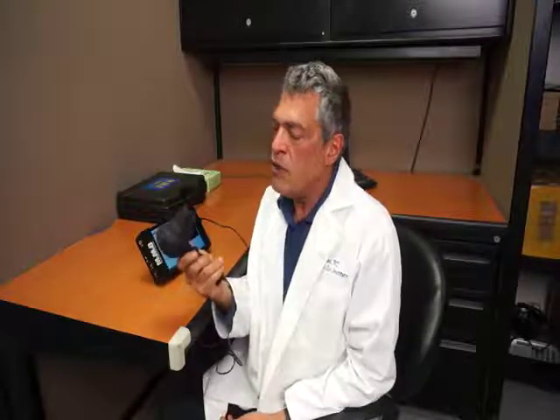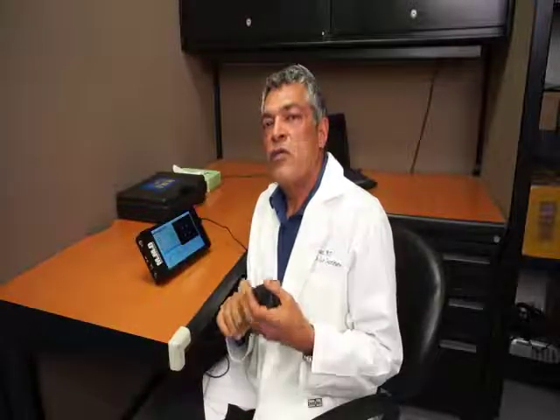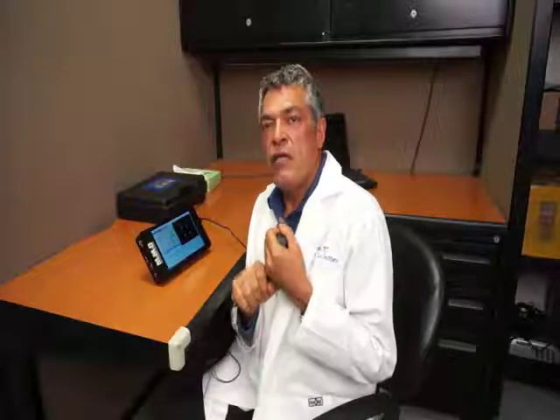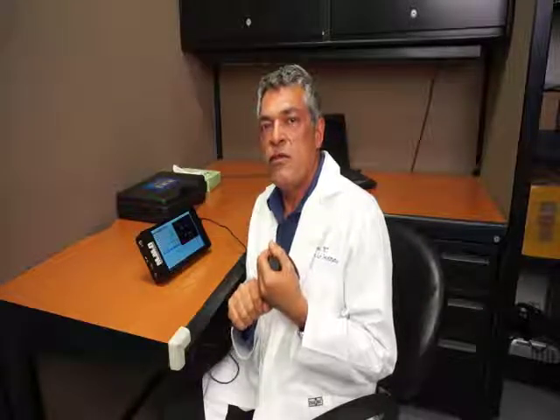Hi, I'm Dr. Rafi Israel and I'm here to talk about the PalmScan K2000 portable keratometer. I'm very excited about trying this unit for a while because I've been getting very accurate keratometric readouts. I want to show you how to use this device accurately, and together with the A-Scan PalmScan A2000 you can do your complete A-Scan biometry on the go at any place. Here is how you do it.